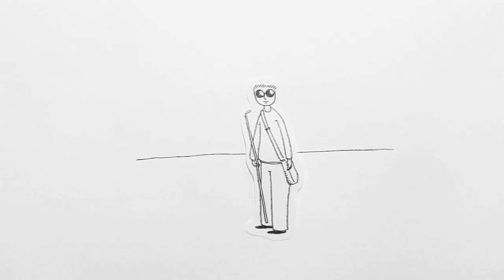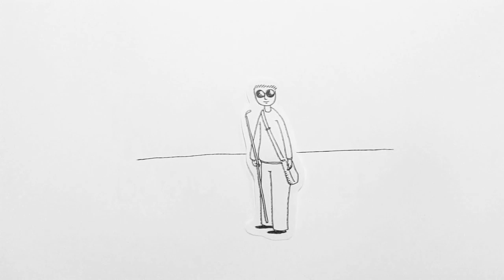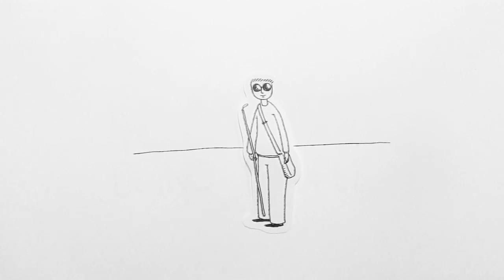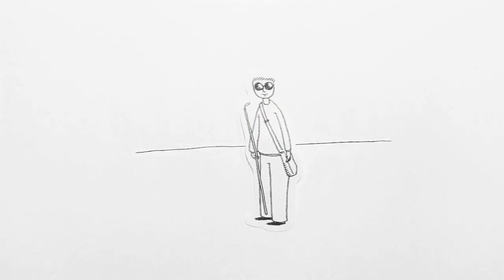This is Tom. He is blind. This is his first day of university. In the mall, he wants to buy a new jersey to fit in, but he can't tell what colour or pattern it is.